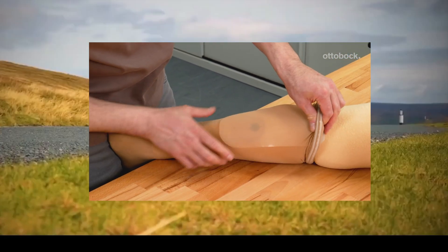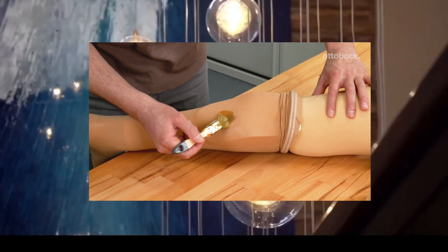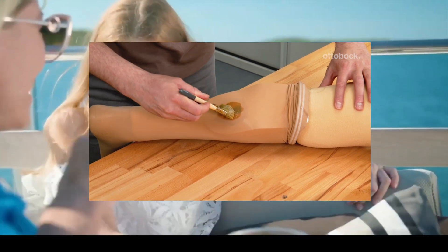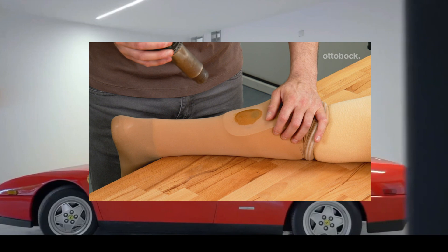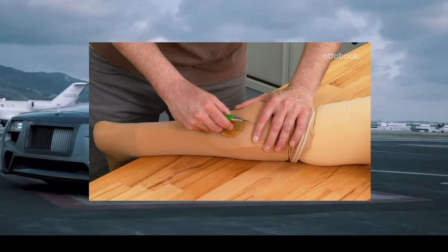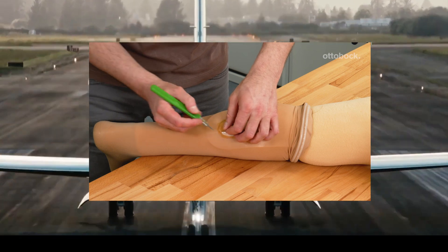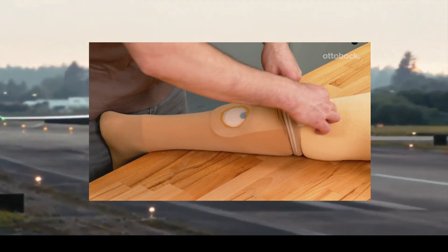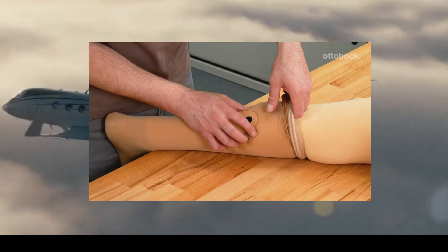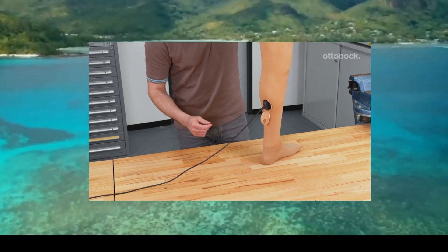Sliding a thin sheet of trolen under the stockings will protect the charging shaft cover. Glue can be applied to the stockings over this area, ensuring the area is not too large. Once the glue is dry, a hole can be cut in the stockings. To ensure a tight fit, a smaller hole than the charging shaft cover is recommended. The stockings can be carefully stretched around the charging shaft, hiding the glued area. Finally, check the assembly by connecting the battery charger.